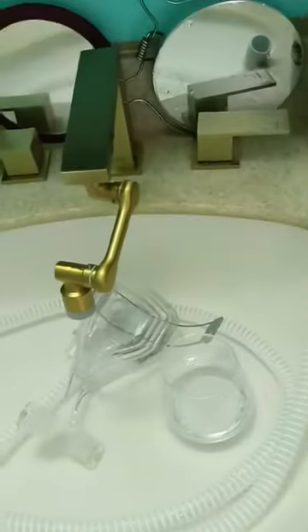So I think it's a good idea. I like it. I give it 4 stars because it doesn't say you can use it on these other things — I just did. It only says you can use it on the cushion, but I thought it's going to clean this, it might as well clean those other things also, right? We'll see. Okay, this is your friend Maui. Sincerely, Charlie. Mahalo.